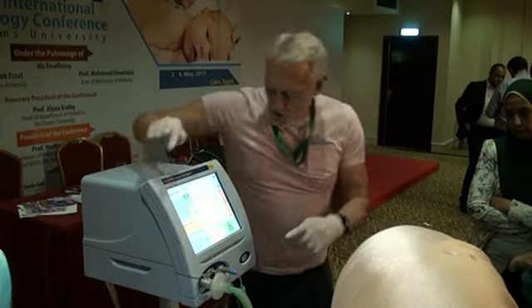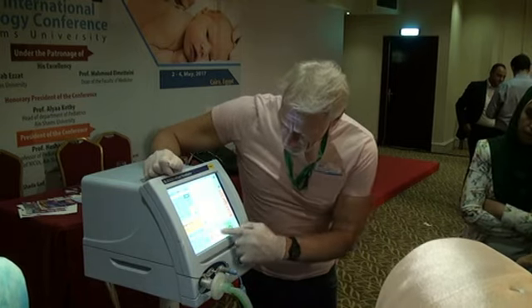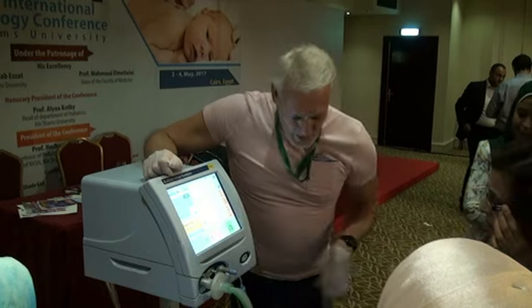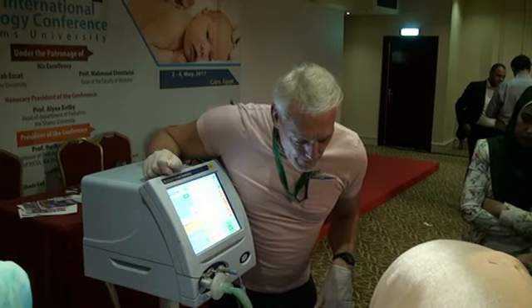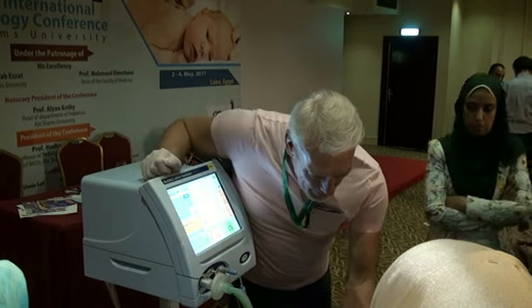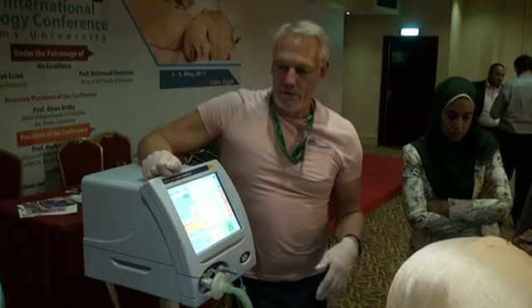Okay. So what I wanted to do now is say, look, here's my mean airway pressure. Let's drop that to 20. I think this lung ventilates quite nicely on 20 on 8. Can you just see it beginning to get creases? Yes. Okay, perhaps we're just a little bit underinflated.